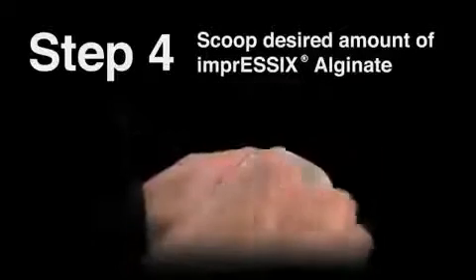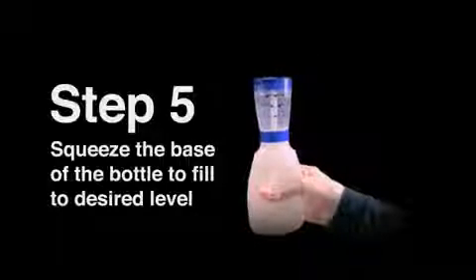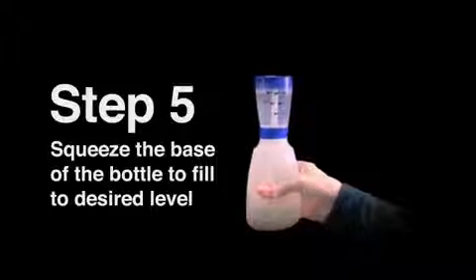Using the water dosing bottle, squeeze the base to fill the measuring cup with water. Match the water level to the number of scoops of alginate used. For best results, use cold distilled water.